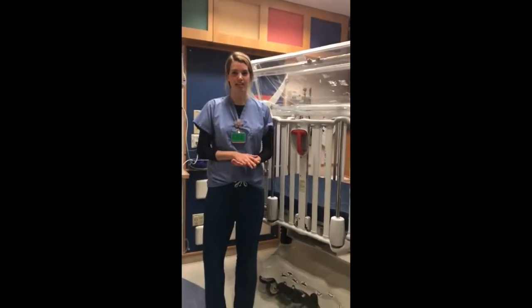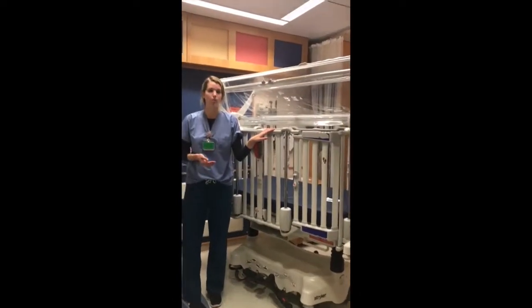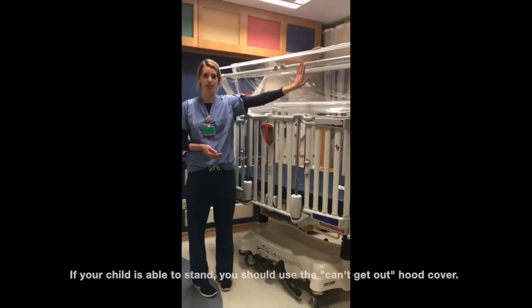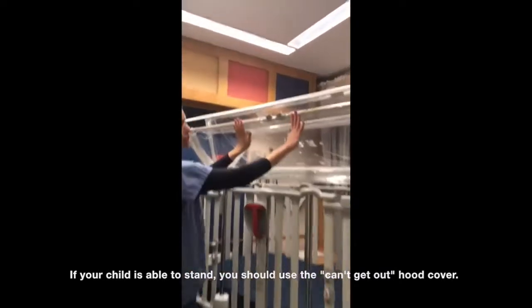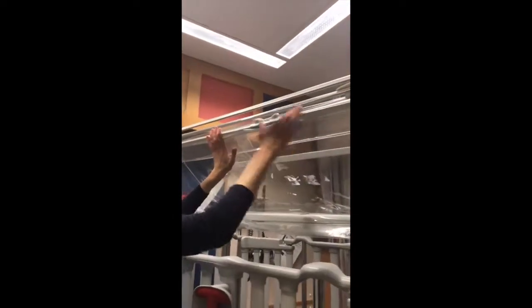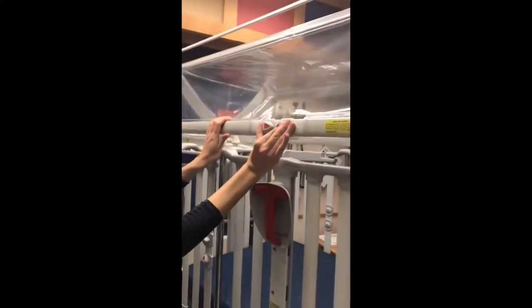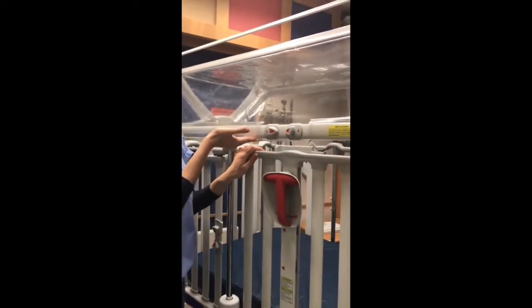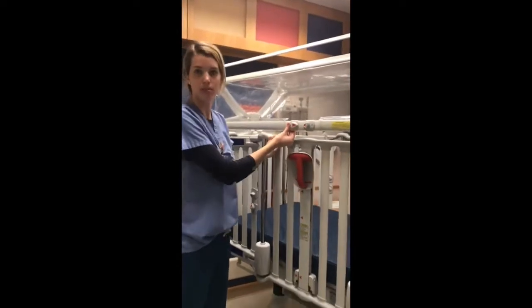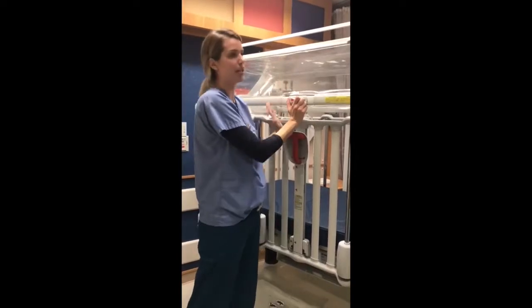If your child is able to stand independently using the side rails or on their own while in the crib, we want you to use the 'can't get out' aspect of the Stryker Pediatric Crib. To operate this feature, gently push up on the bar, pinch the red arrows towards each other, and bring the bar down. You'll hear a click into the locked position. Always double-check by pushing or pulling on the bar to confirm it's in the fastened position, and make sure both sides are down.